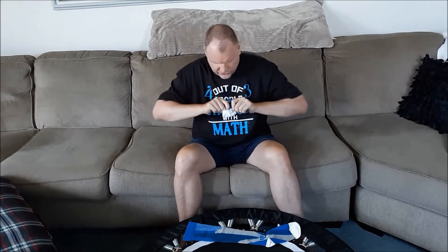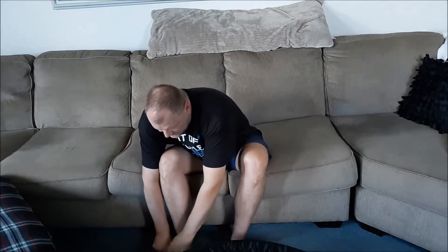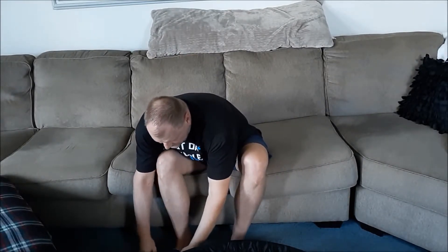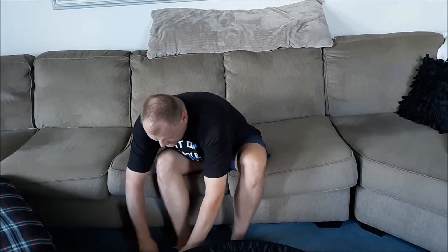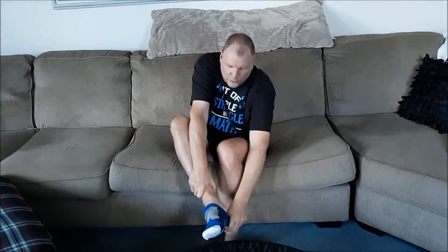Try to pull them apart a little bit, just stretch them out this way. If you know my health issues, I'm not as bendy as I used to be — I've got some cervical disc issues, actually some repairs to my cervical disc. So you're going to have to take your time and work it on little by little, and hopefully your fingers are working good. Go ahead and start pulling them up.